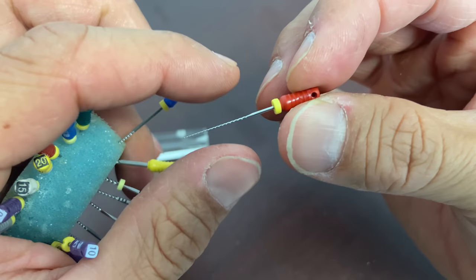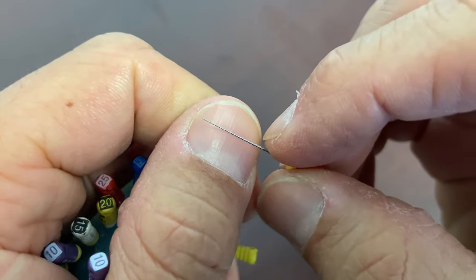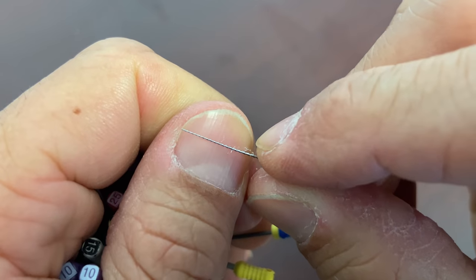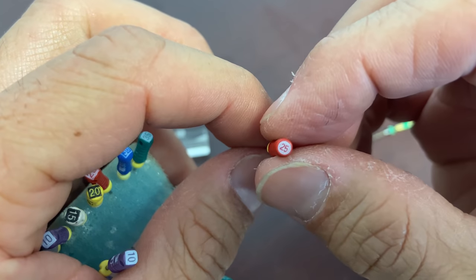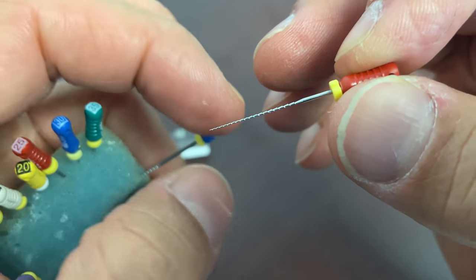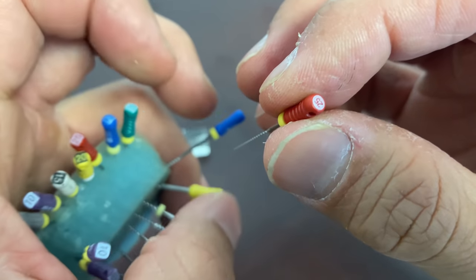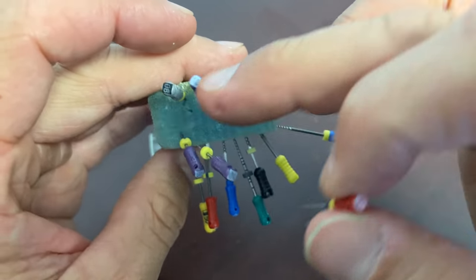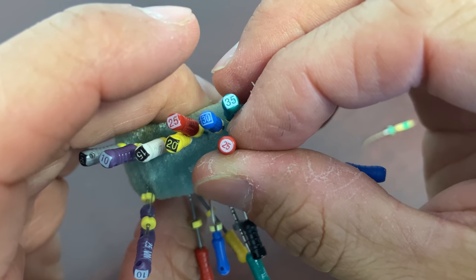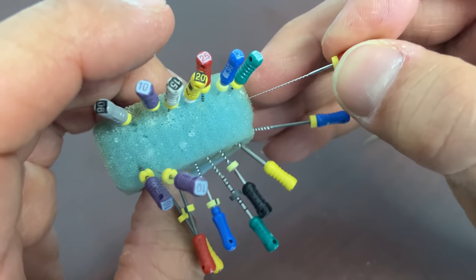A Hedstrom file is more for what we call filing. The shape isn't an S-shape — it's really aggressive and made for filing. You can use them for removing gutta-percha as well. If you're quickly looking at different files and you see the circle handle, I would highly recommend not watch-winding that one or screwing it in because it's very aggressive and easy to break.